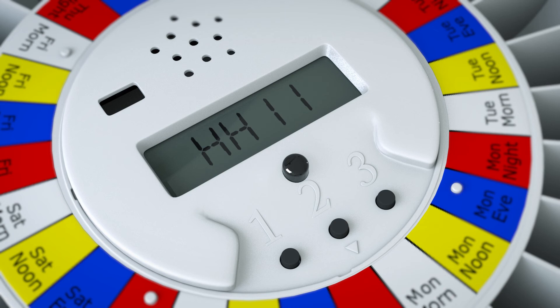The hour set should always be earlier than the first dose due to be dispensed for the user. For further notes on this, please refer to the instruction book. You must have set the date setting in menu A to use this function.